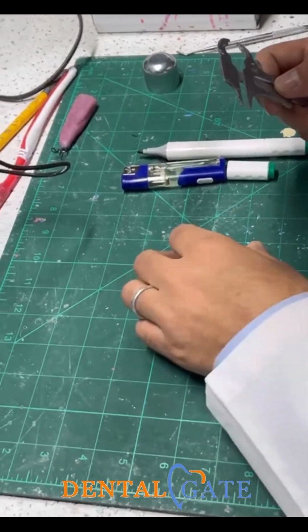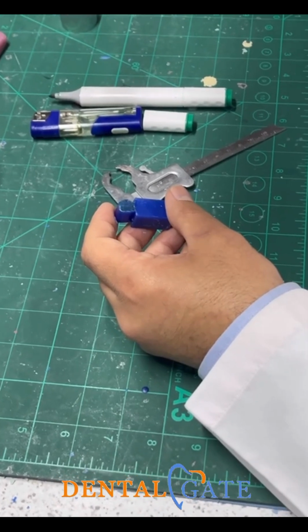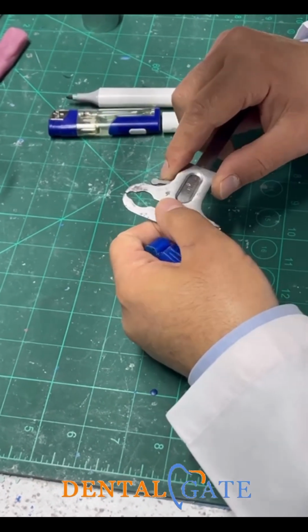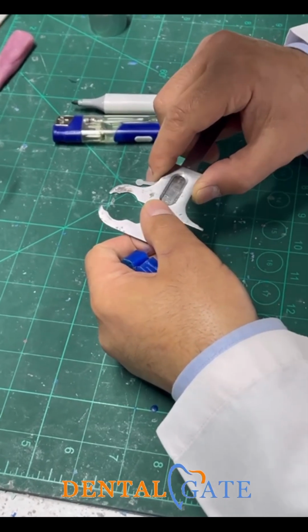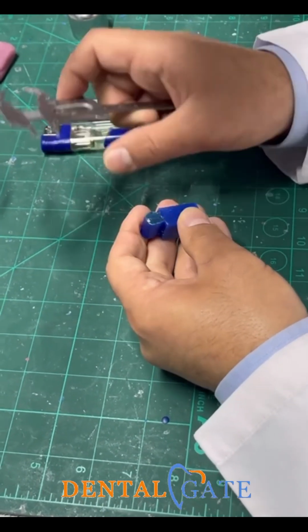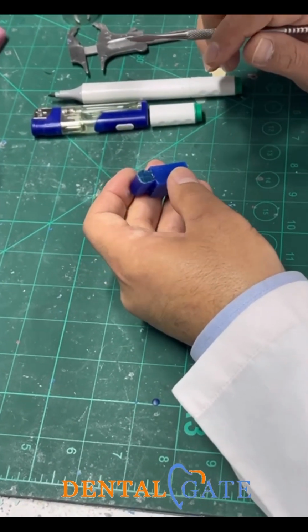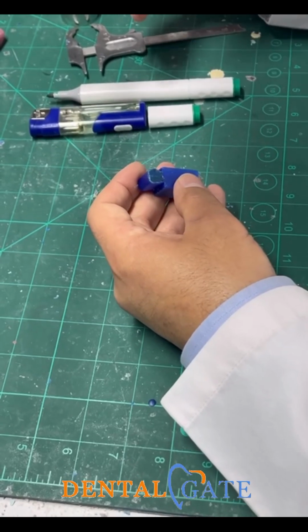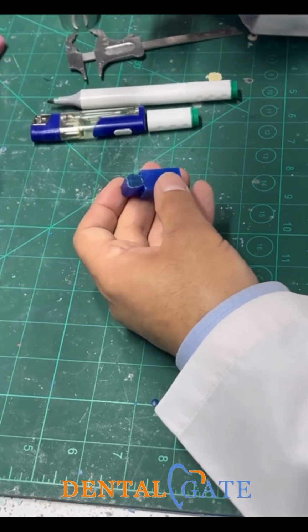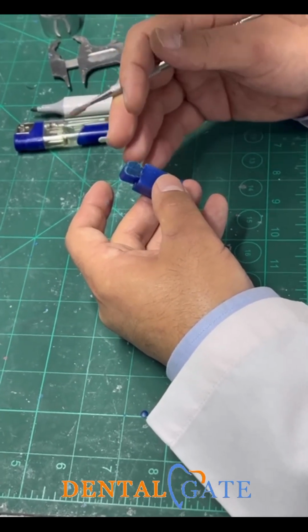So this is 9 millimeters we have here to represent the length of the crown. Make a double check. This is 9 millimeters. So this is my labial aspect of the lateral incisor. Within this stage, I can manage my carving. After that, please make a double check for the labial aspect.